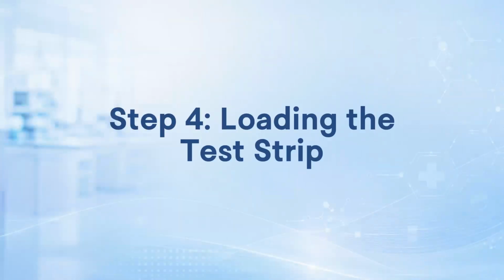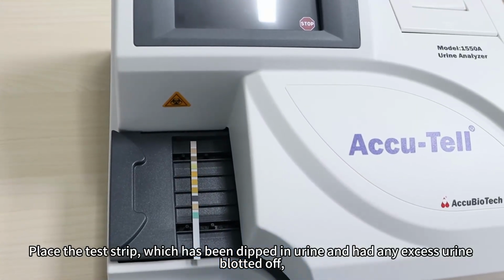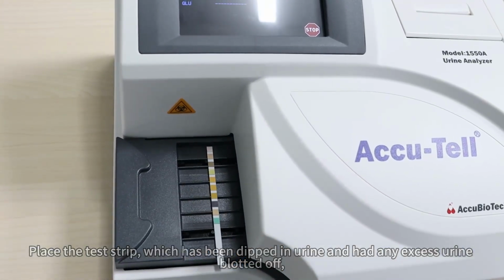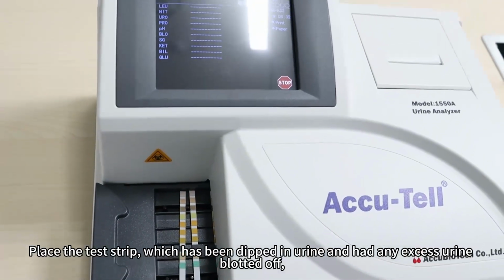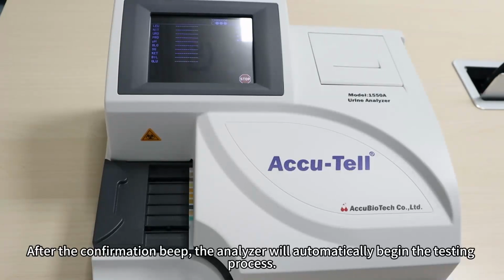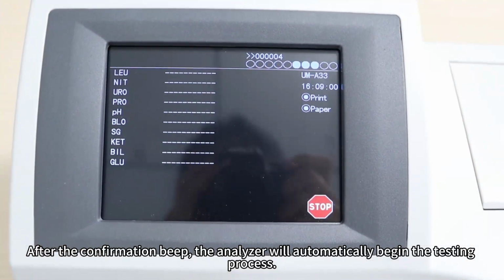Step 4. Loading the test strip. Place the test strip, which has been dipped in urine and had any excess urine blotted off, on the tray in the correct orientation, with the reaction pad facing upwards. After the confirmation beep, the analyzer will automatically begin the testing process.